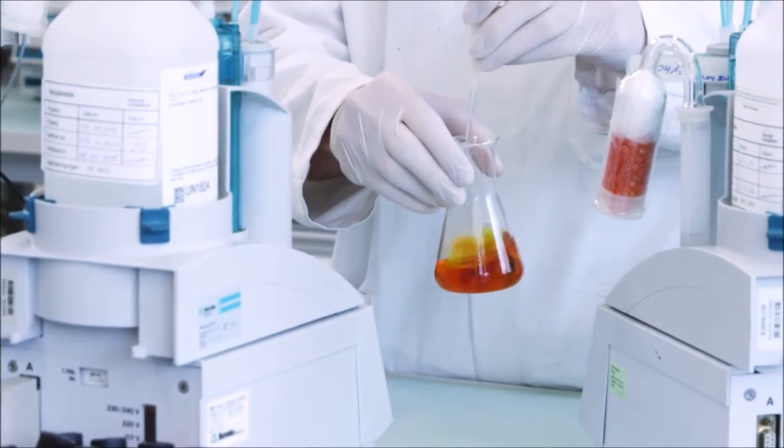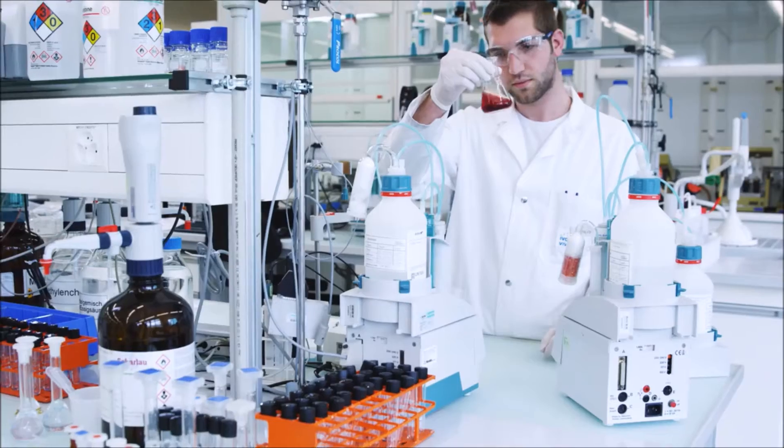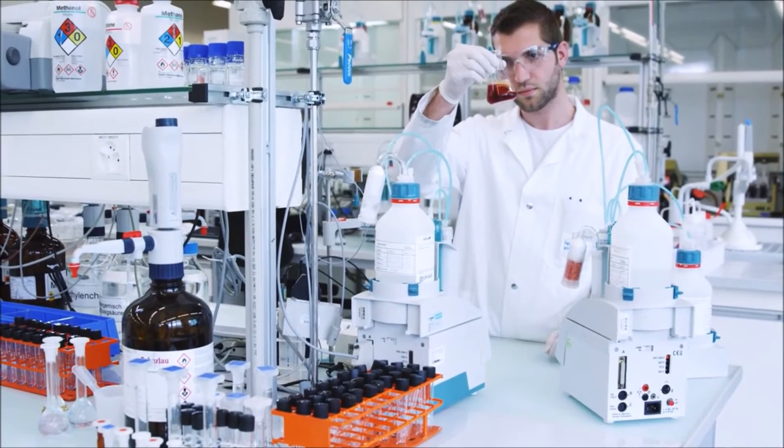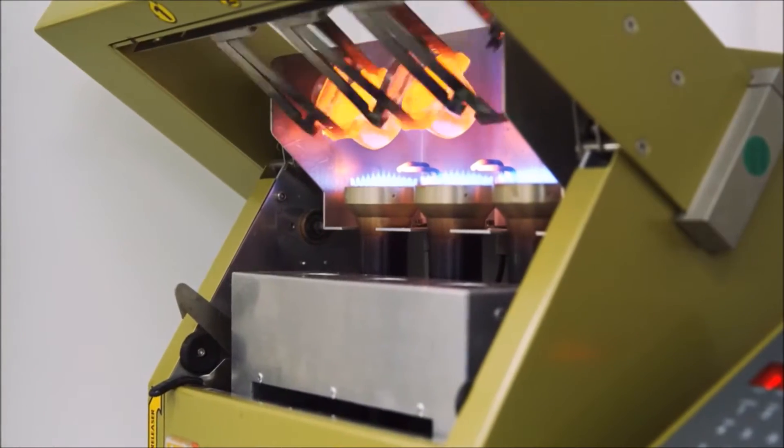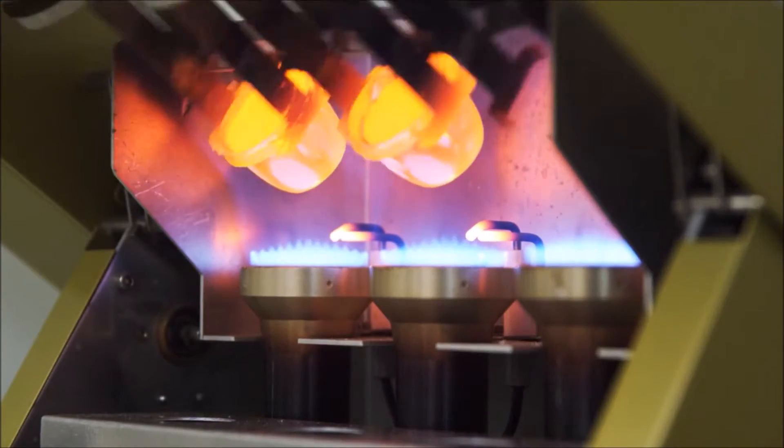Ivoclar Vivadent is proud of its IPS e.max and IPS Empress glass ceramic blocks. They are used to fabricate long-lasting, aesthetic, high-quality restorations.